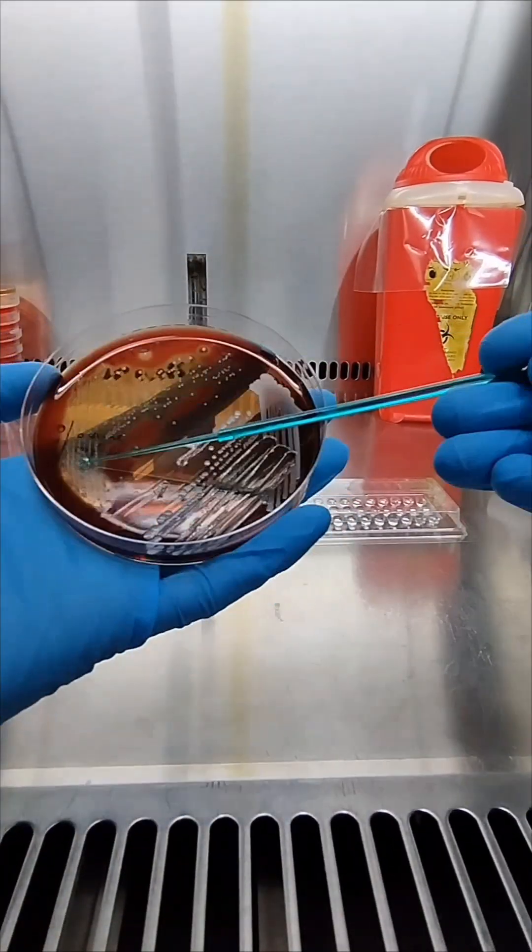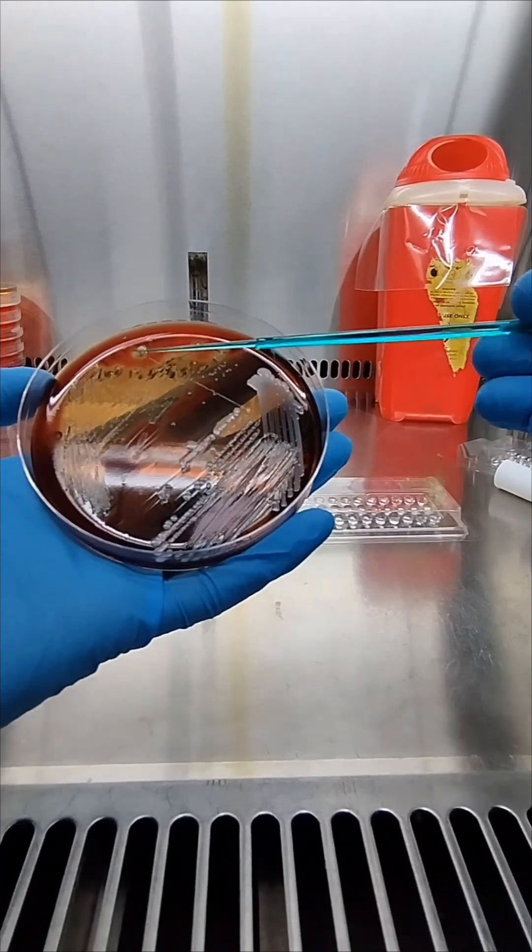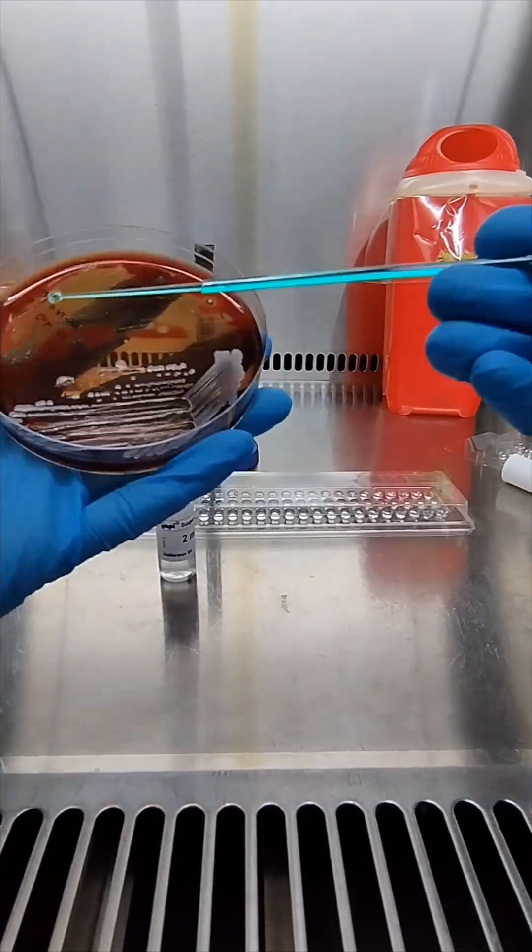Now prepare the inoculum into a suspension medium of 4 McFarland. The turbidity and the suspension medium depends on the type of bacteria we are going to identify.